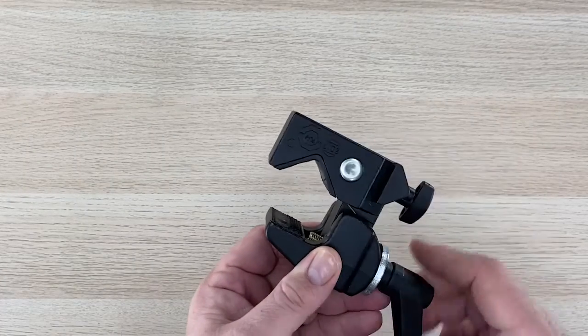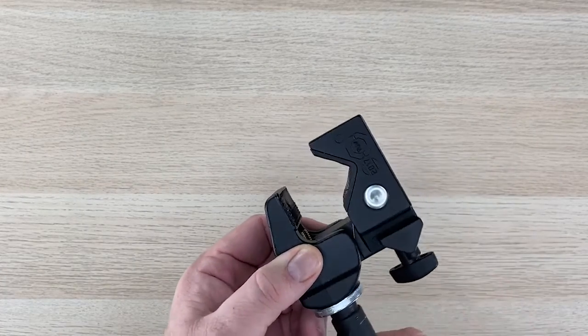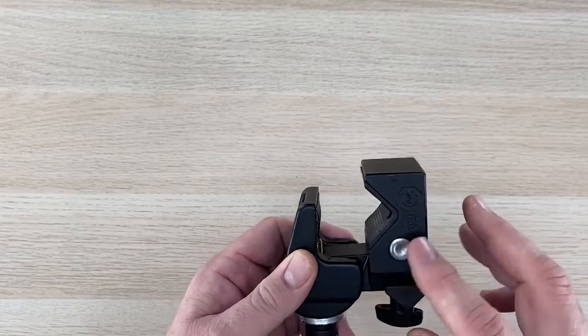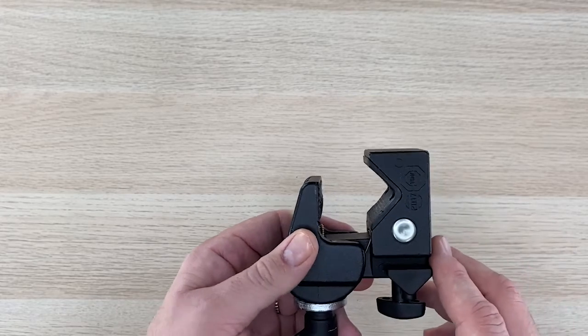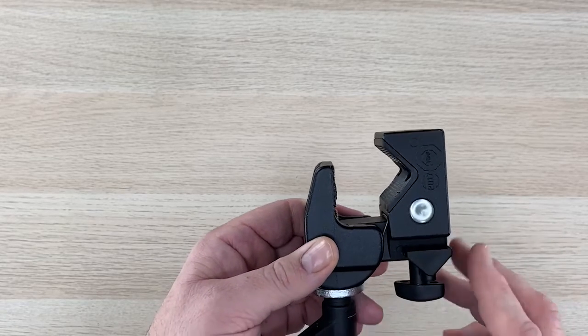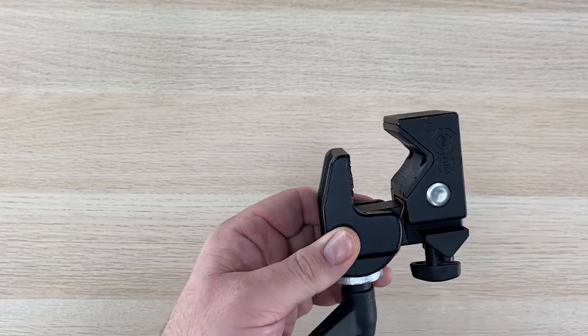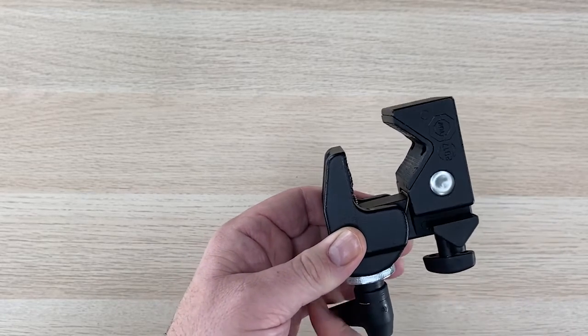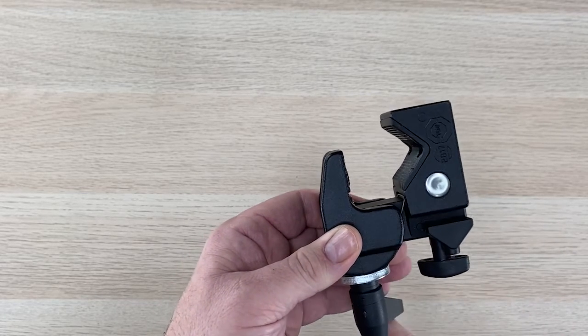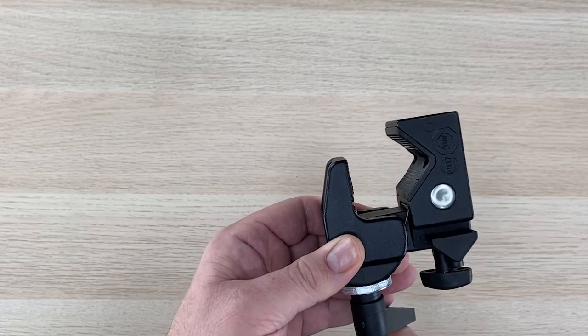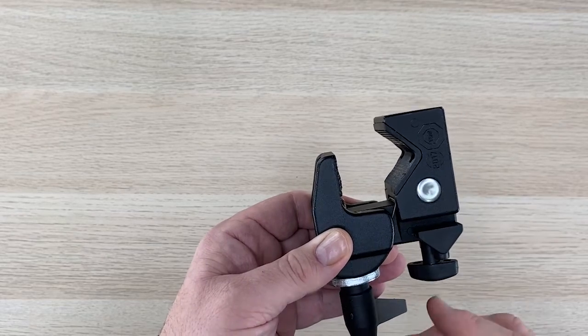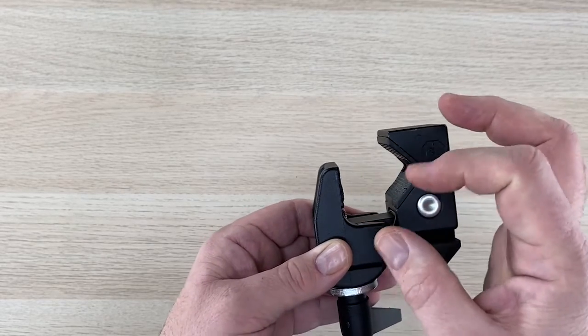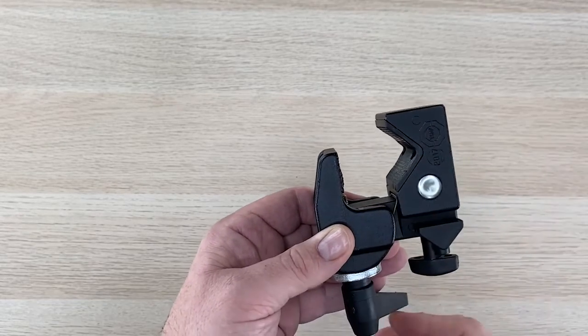The orientation that the super clamp is in right now is an open seat which will allow the clamp to be able to be used for a wheelchair or other device that has a circular or oval shape.